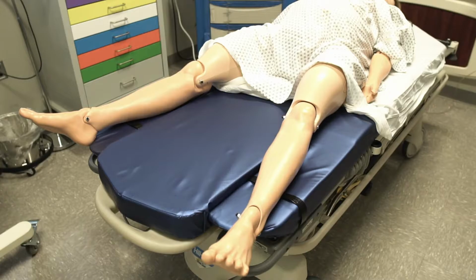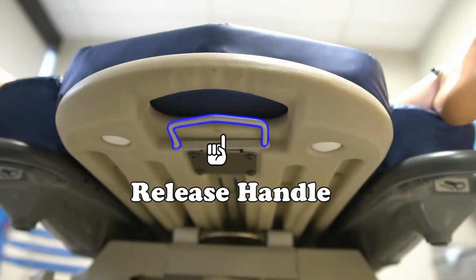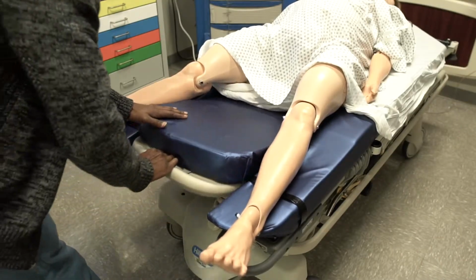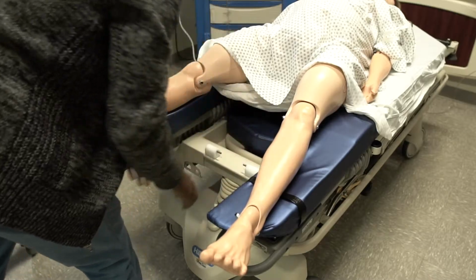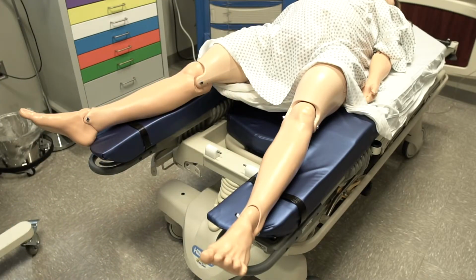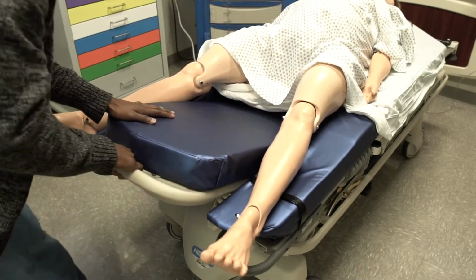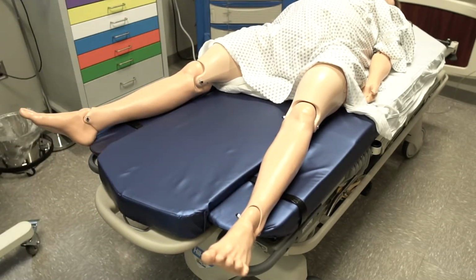stowaway foot section. To use it, just squeeze the release handle as you raise it, then just slide it forward. To put it back, grab and pull the handle until it stops, then push the foot section down until it locks into place. This stretcher also has integrated foot support.